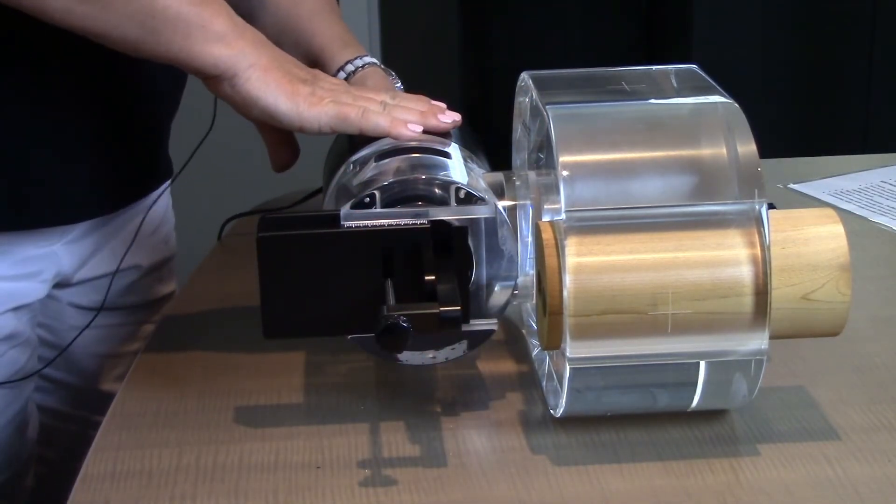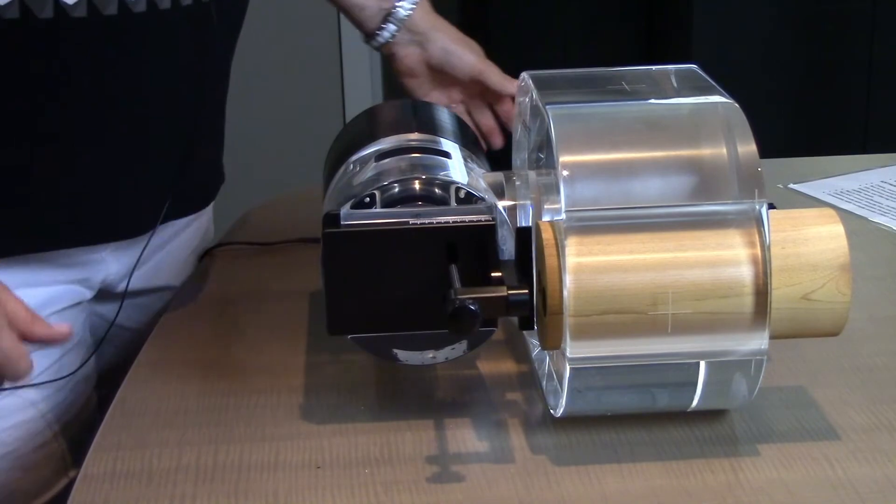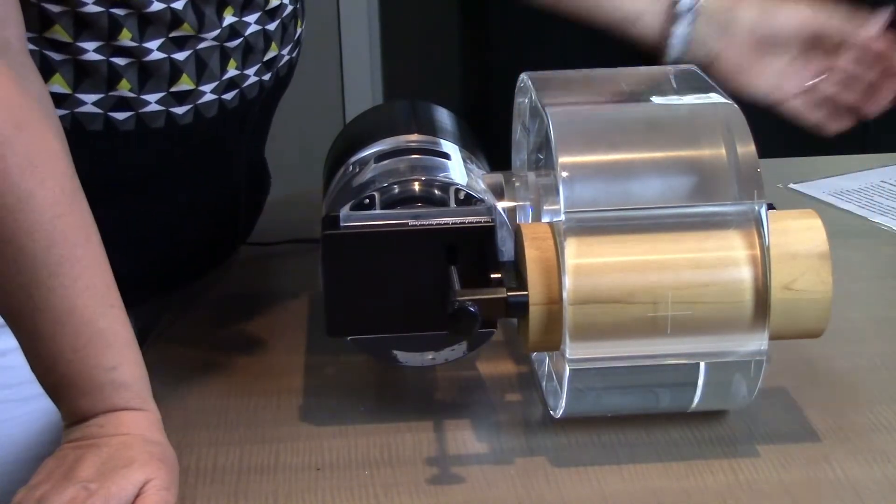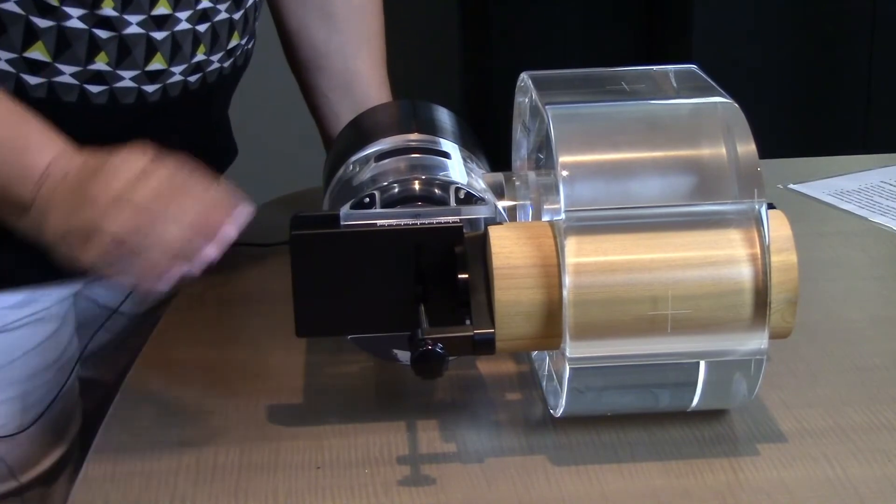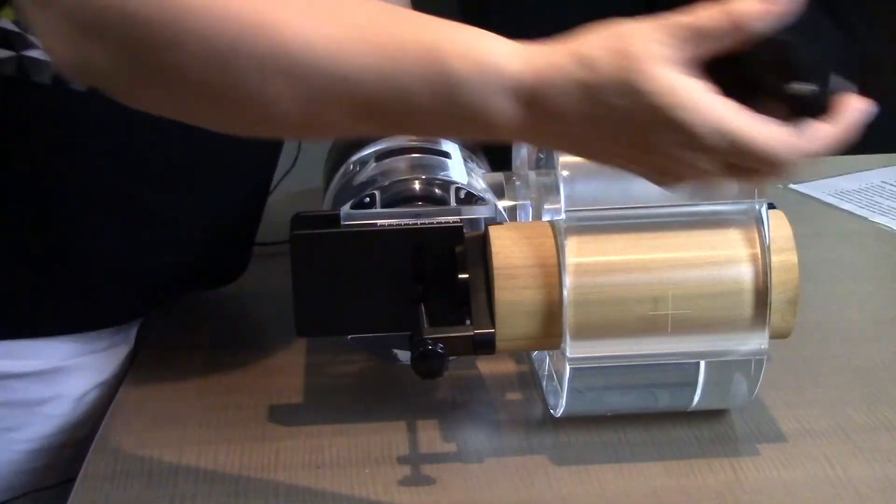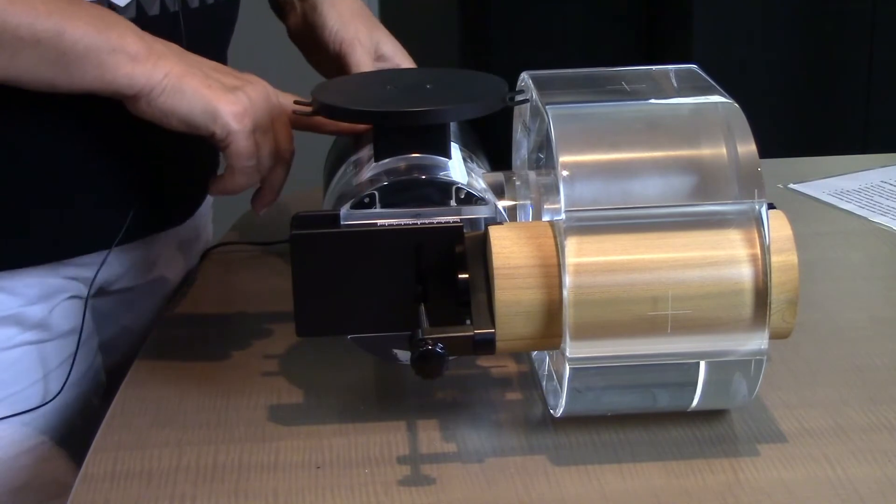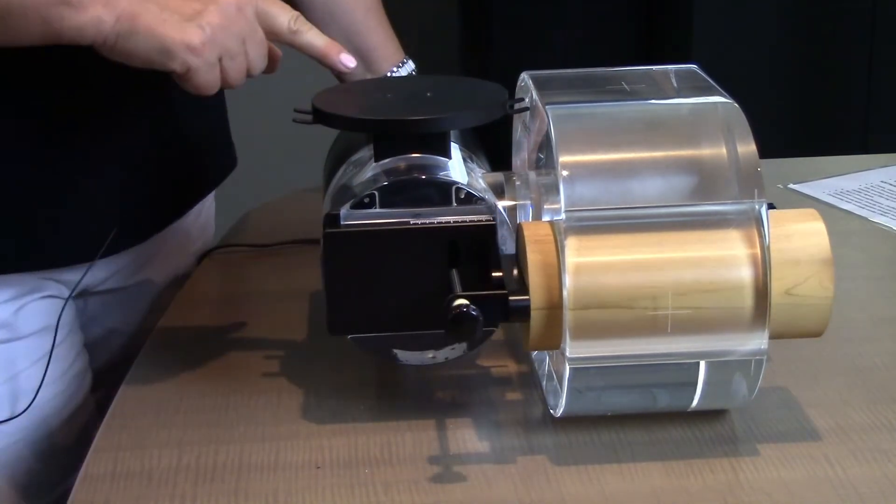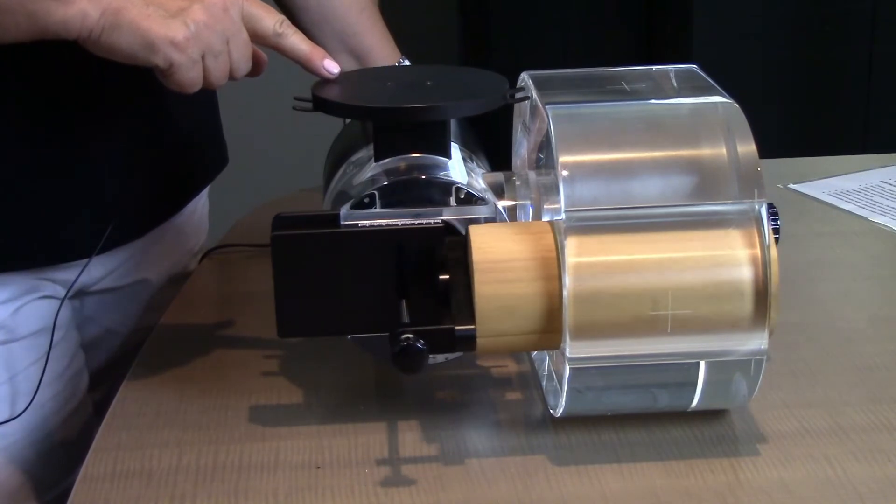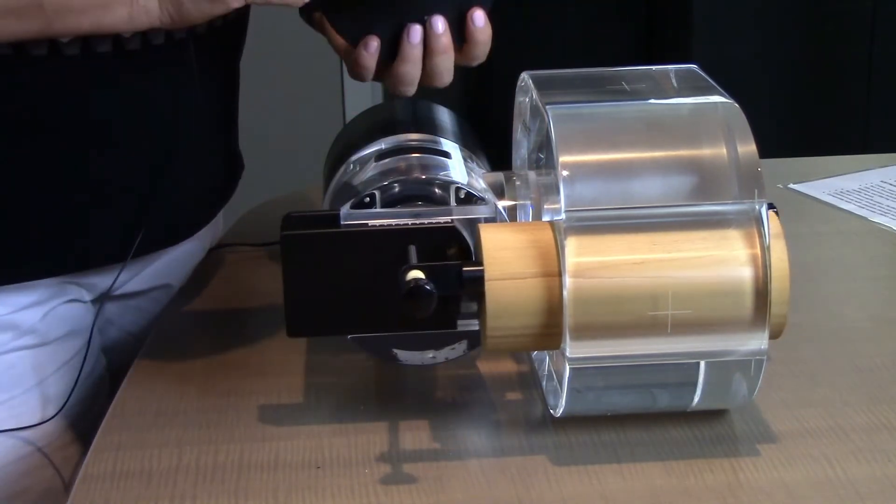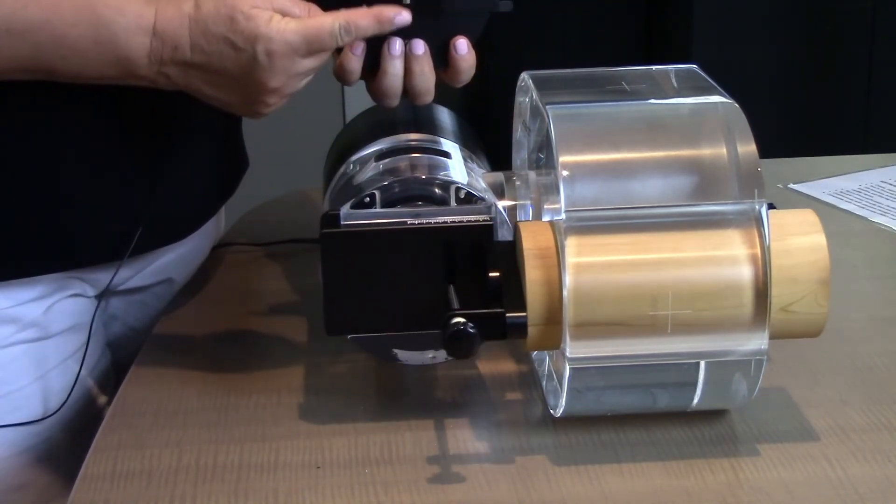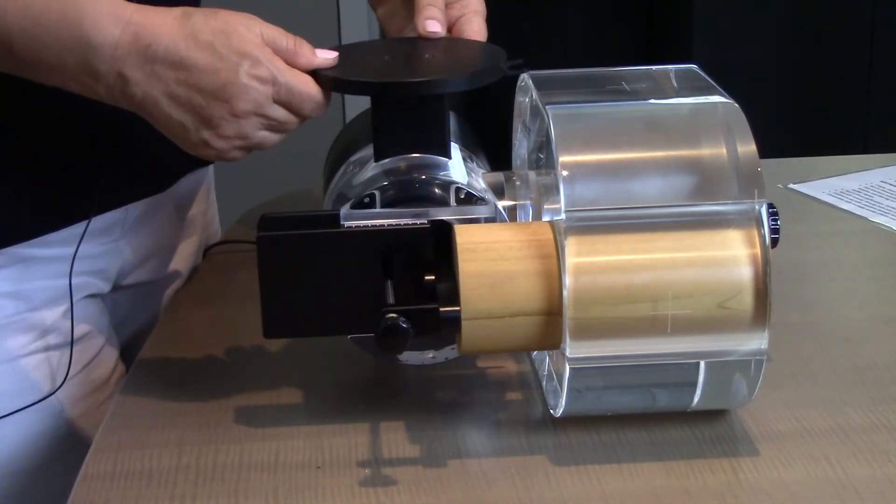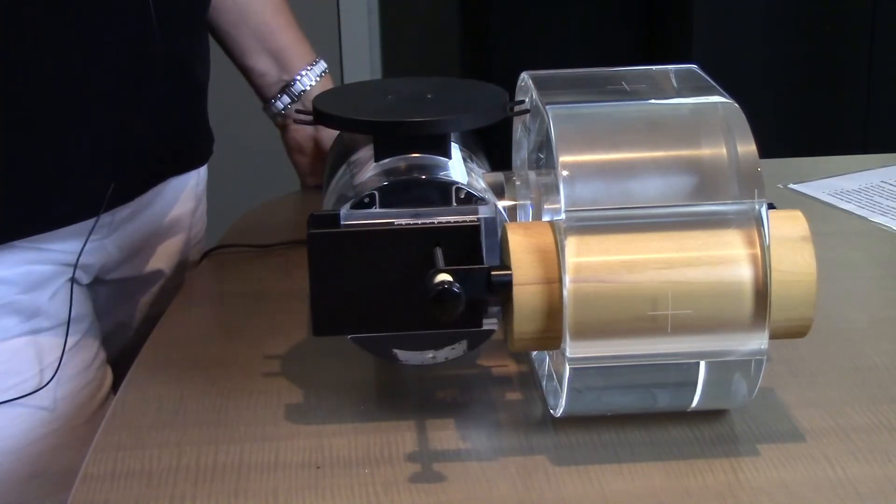Plug in your phantom and you're ready to go. Now attach the insert, take the platform, push go, and now you have the rotation with the breathing waveform. The way we know we have the breathing waveform is the roller is towards the insert. And you're all set.